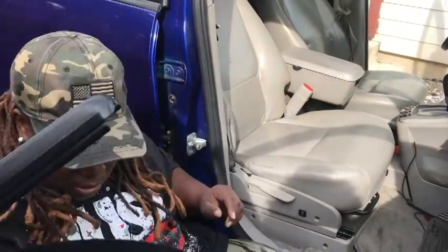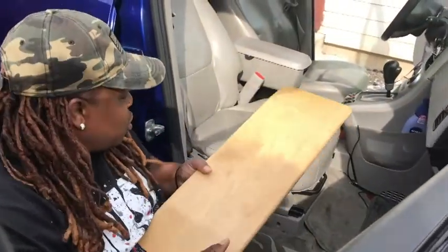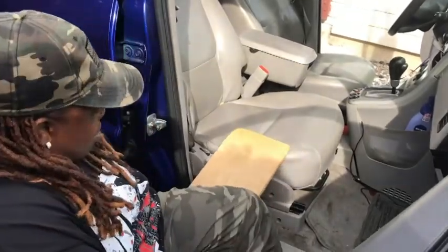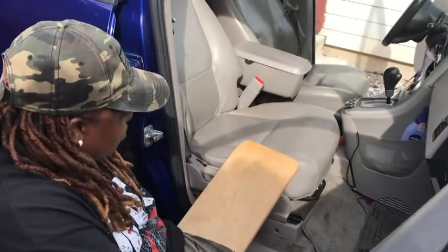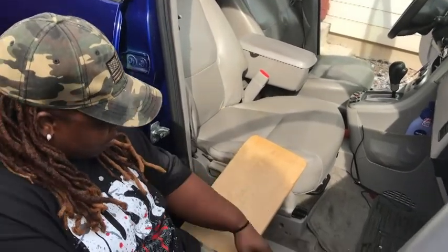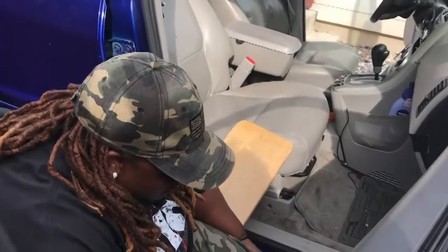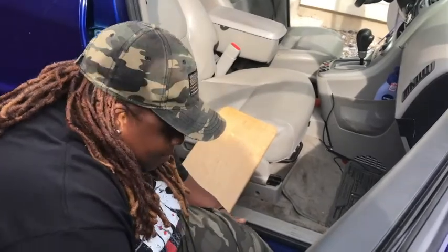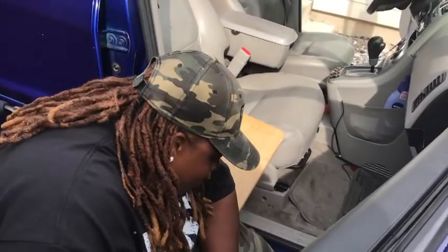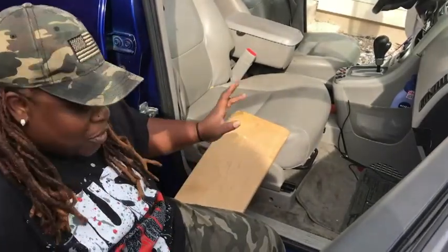I'm going to get rid of my armrests, place my transfer board underneath my left thigh, and just wait for my spasms to calm down before I transfer. Okay, make sure it's in there tightly and secure.